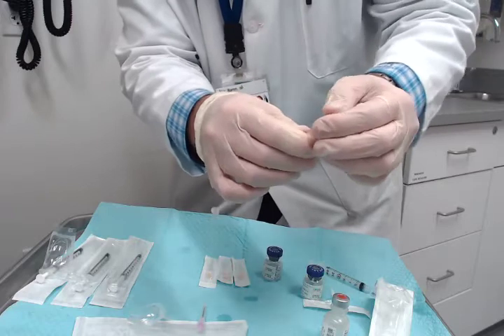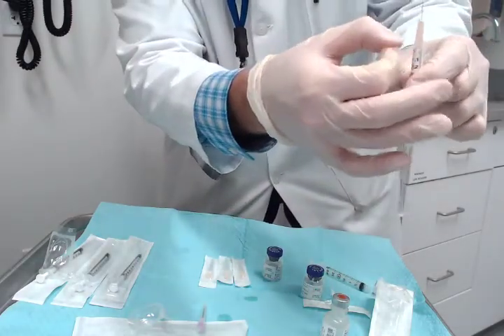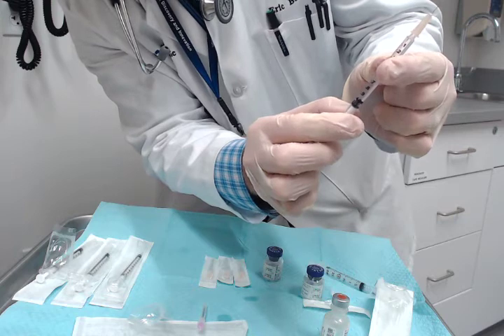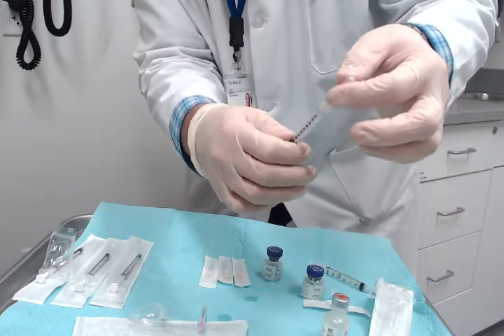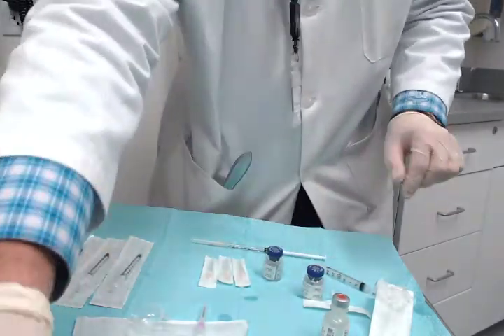When you do start to use these needles, make sure all the bubbles are out of there. You want to get the plunger flush to the bottom — that's usually just enough for what you need. Then put the cap on and that one's ready to go.